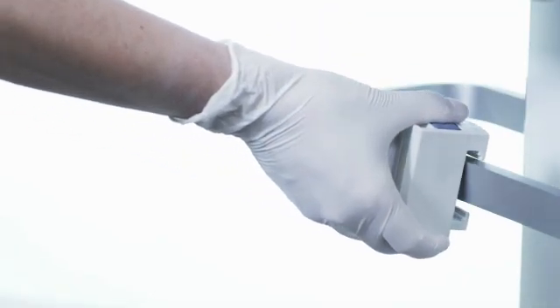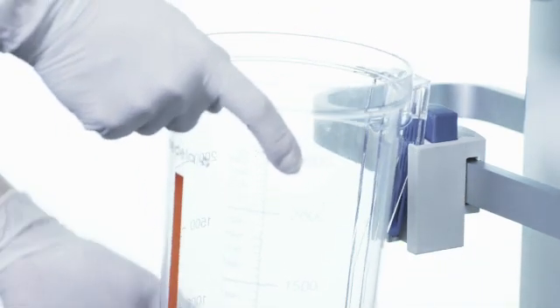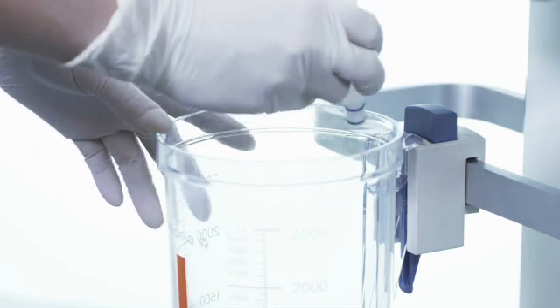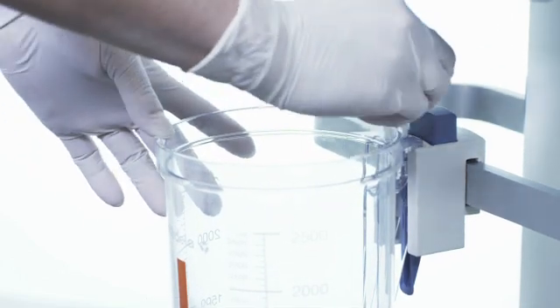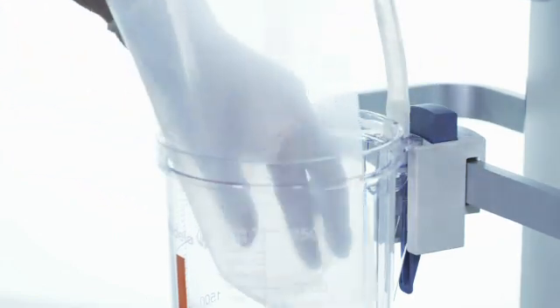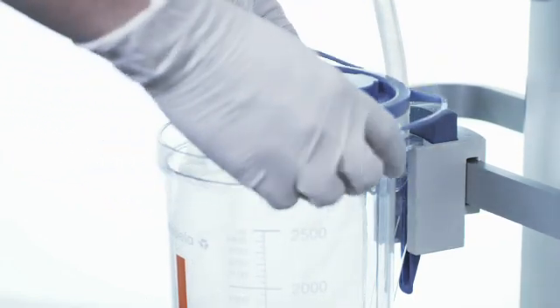Press the blue button down on the clamp to release the jaws and connect to the rail. Connect the jar to the clamp. Insert the tubing into the neck of the jar.